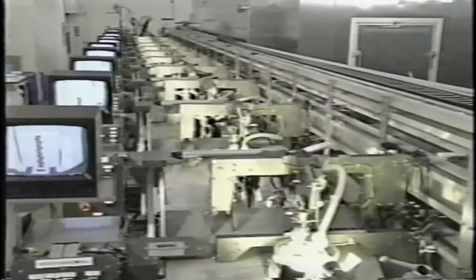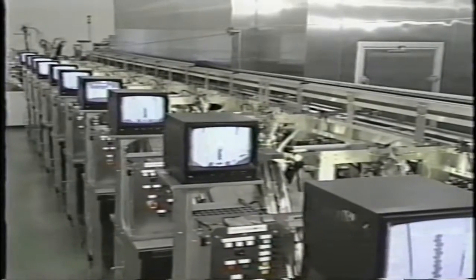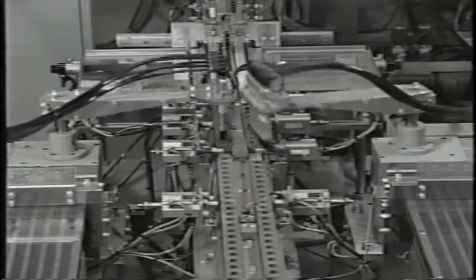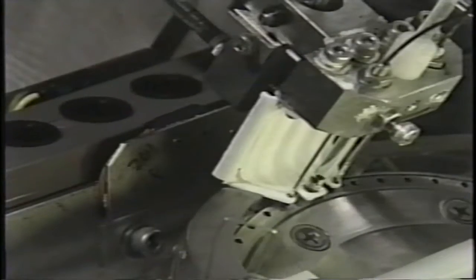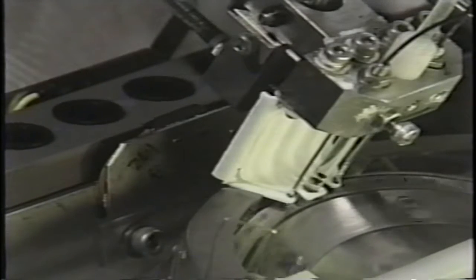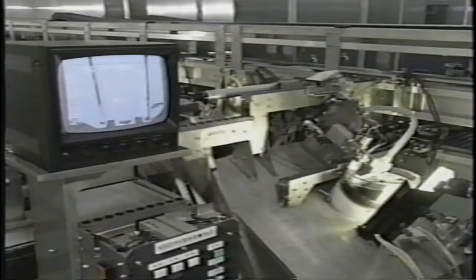The AIA-packed test cups are produced in this computer-controlled clean room. First, empty test cups are loaded into transport blocks, five at a time. Multiple assembly lines are utilized for higher throughput and for easy expansion to meet increasing customer demand for reagents. Antibody-coated magnetic microbeads are individually aspirated, counted, and weighed.